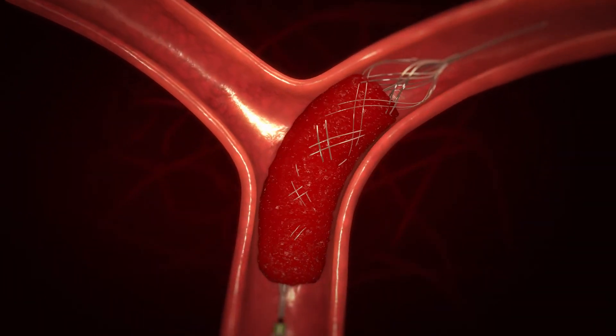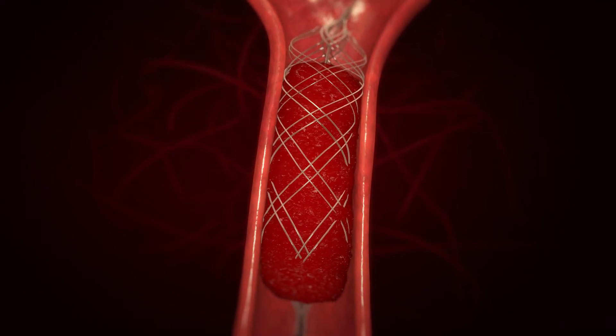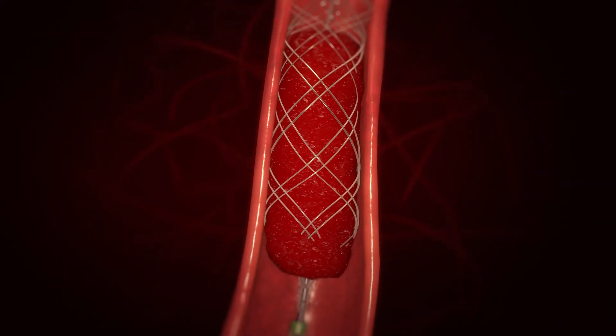During the clot removal, net diameter can be adjusted by the physician to optimize wall apposition and ensure a perfect fit during transitions in different artery dimensions.